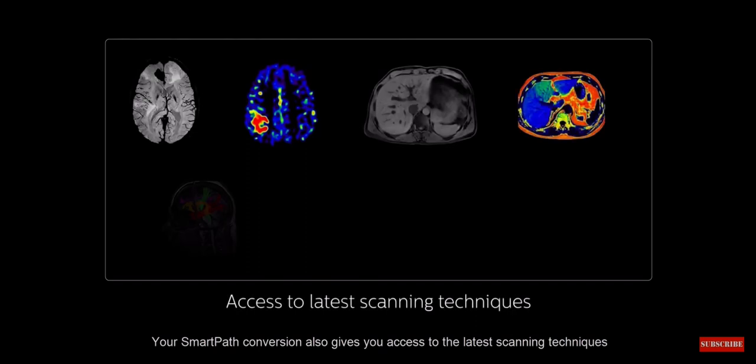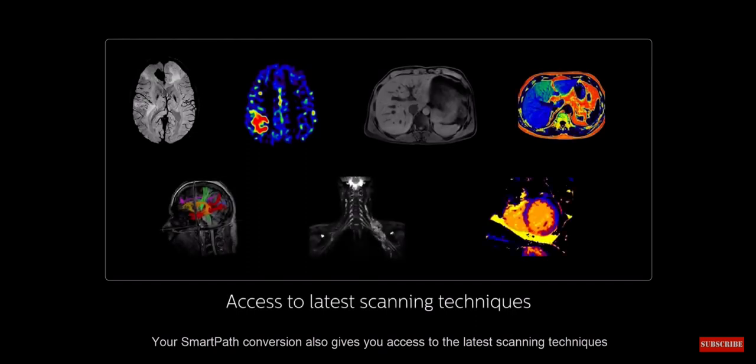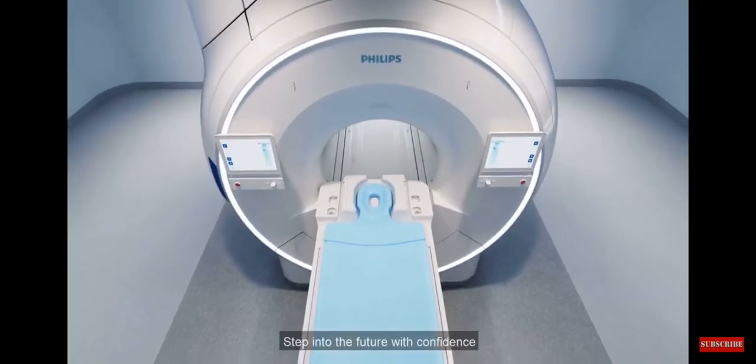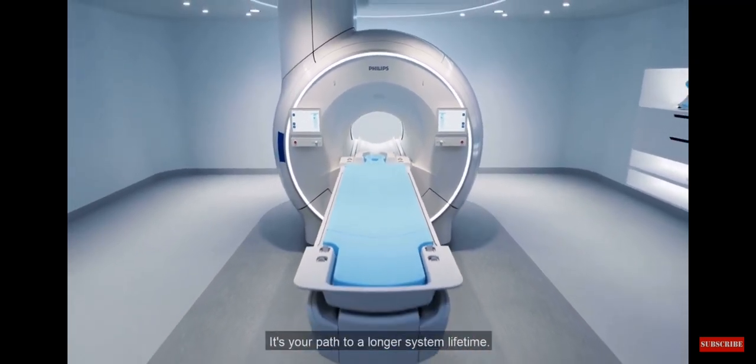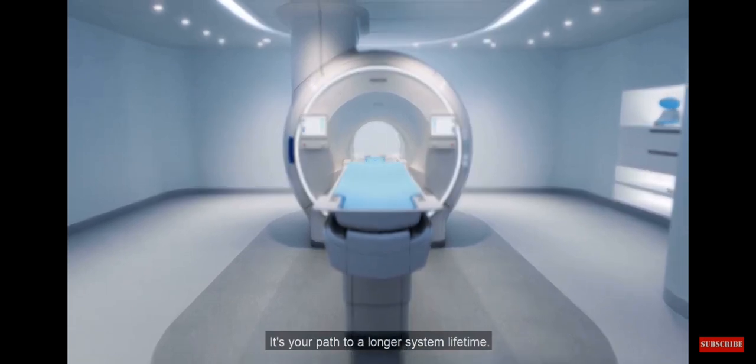Your SmartPath conversion also gives you access to the latest scanning techniques for confident diagnoses of the most challenging clinical indications. Step into the future with confidence with the Philips SmartPath program. It's your path to a longer system lifetime.